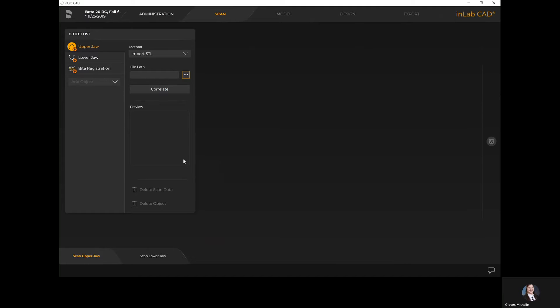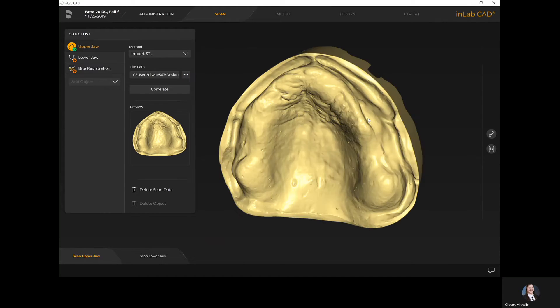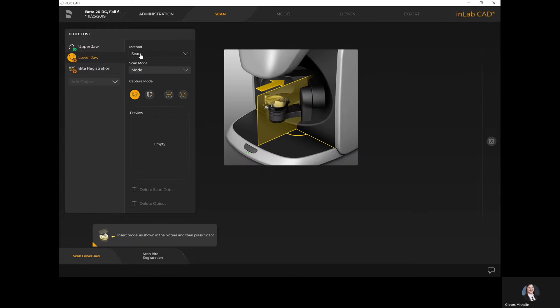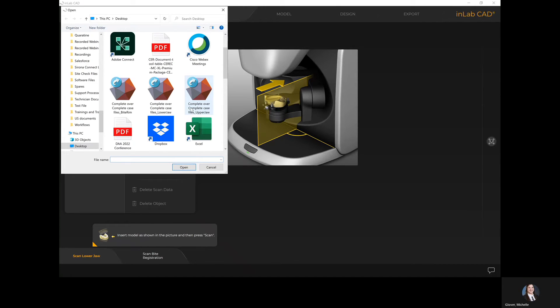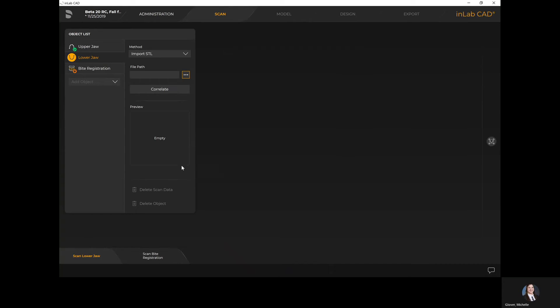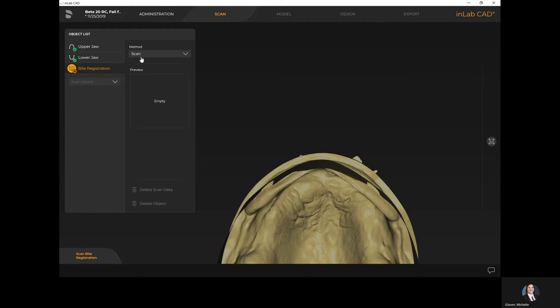The system defaults to needing three scans: an upper jaw, a lower jaw, and a bite registration to complete my complete over complete case. I'll now do the same with the lower jaw — changing the method from scan to import STL and importing my lower jaw scan. Once I have my lower arch imported, I'll do the same with my bite registration file, importing from whatever scanner was used, whether an intraoral scanner or a third-party tabletop scanner.